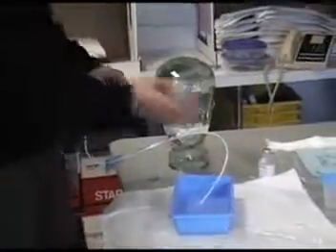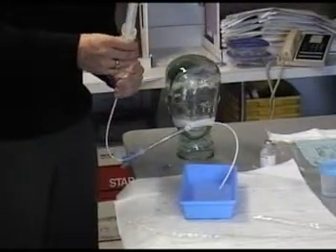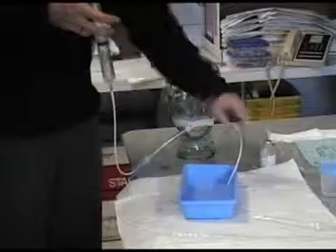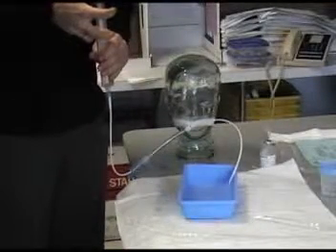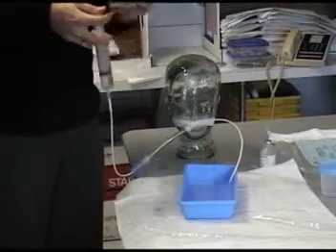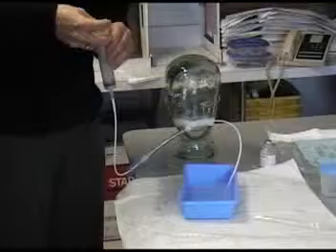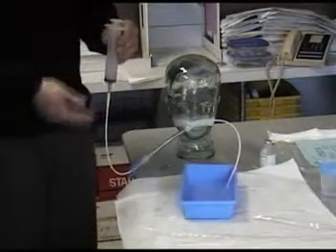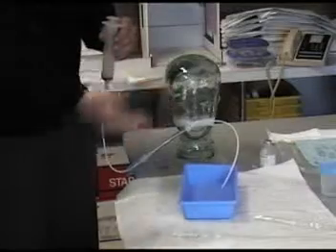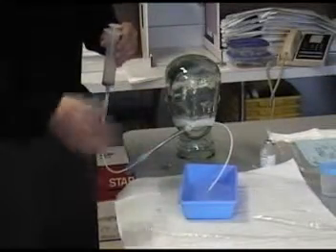Now what you'll do, attach your syringe with saline, plunger up, and proceed to lavage. You'll feel a good bit of pressure on this. It's a very long, skinny catheter, and you're going to feel the lumen is quite restrictive. I don't know if you heard that there, but the air was the last thing to go through and cleared out the catheter and also allowed the catheter to be emptied.